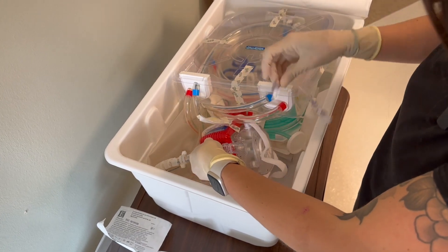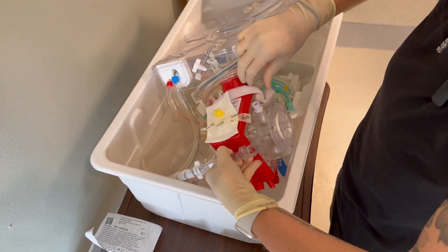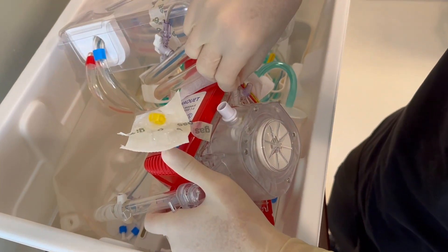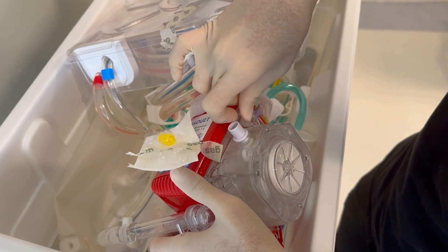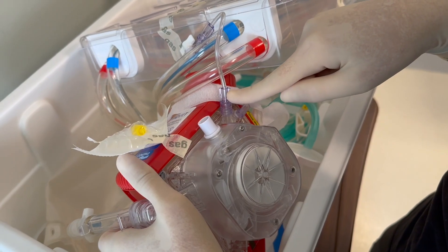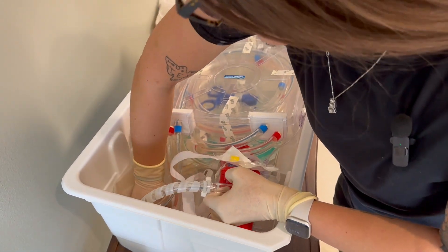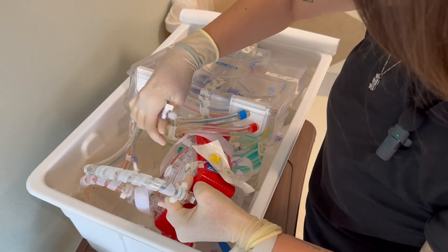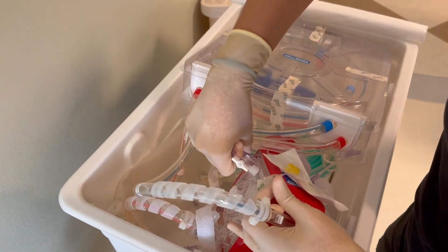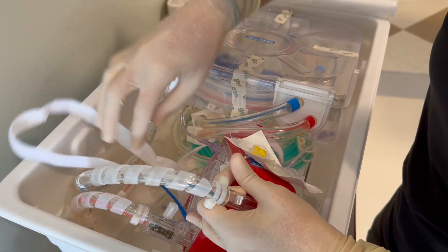Take your pigtail and place it up at the top — it's the one with the cap. You're going to remove the cap and attach your pigtail there. Not this one, because this is where your yellow cap goes. Remove this cap and attach your pigtail there. And you're going to remove the last cap right here.